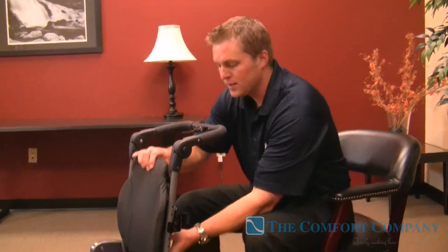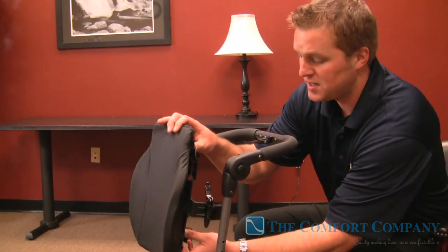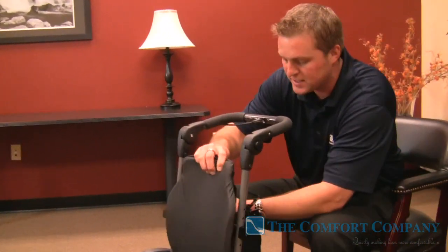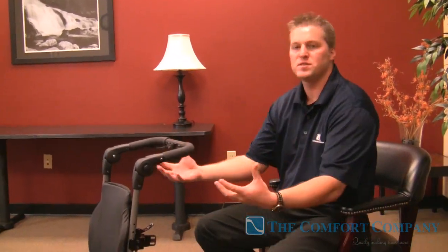What we have here is a new way of doing old business. Everything we knew before for pediatric seating has been plywood and T-nuts, and you get one set of adjustments — it's big, heavy, and bulky. The system we have here is much lighter than alternative seating systems, so you're going to be able to push it, take it off easily, and mold and change it without adding weight.